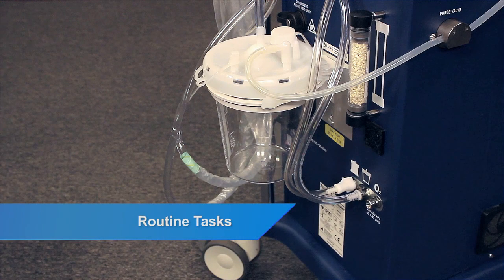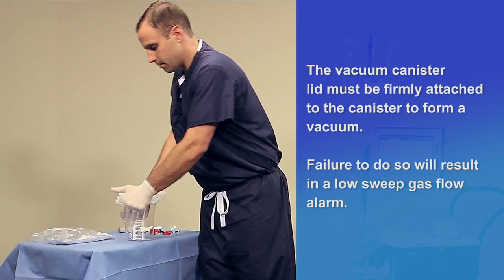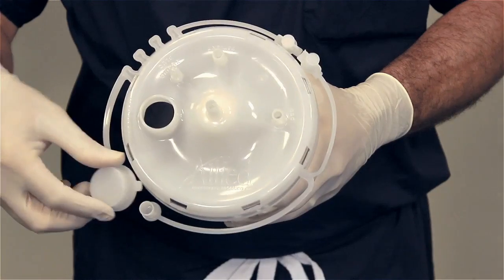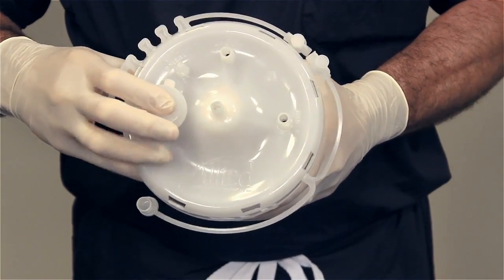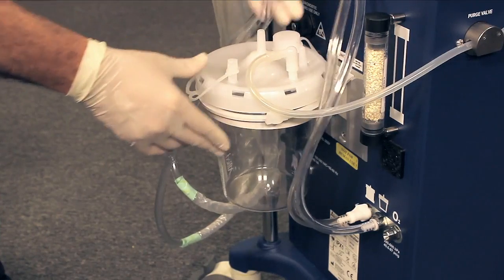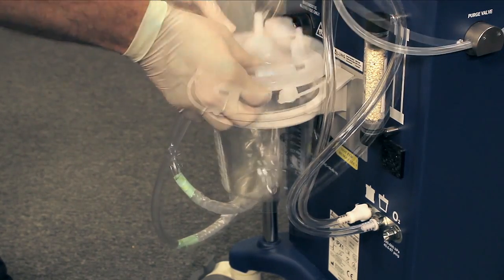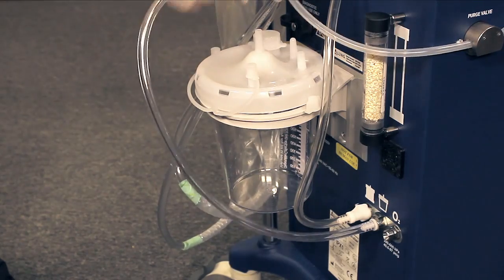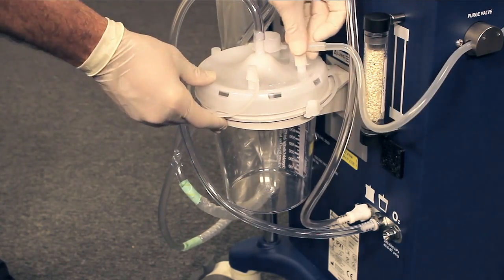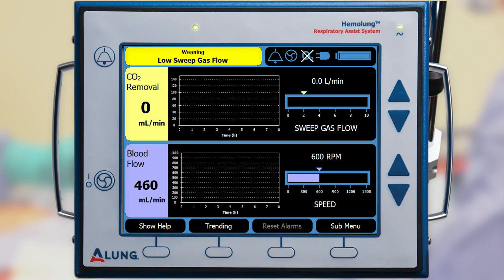Routine tasks during therapy: the vacuum canister will need to be replaced daily. Start by assembling a new vacuum canister. Securely seat the lid by applying pressure around the entire circumference of the lid. Next, cap the two unused ports — accessory and tandem. Disconnect the vacuum tube from the center port labeled 'vacuum source' on the old canister and attach it to the new one. Disconnect the sweep gas elbow from the port labeled 'patient' on the old canister and attach it to the new one. An alarm will temporarily appear on screen during the vacuum canister change and will clear within approximately one minute.